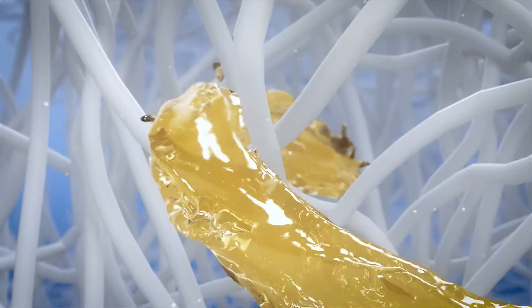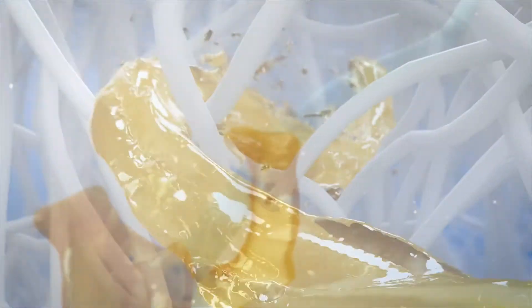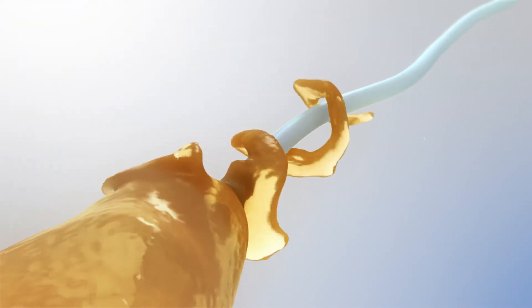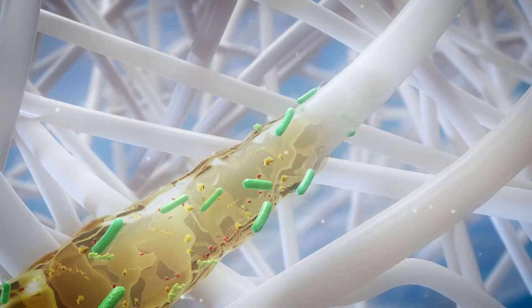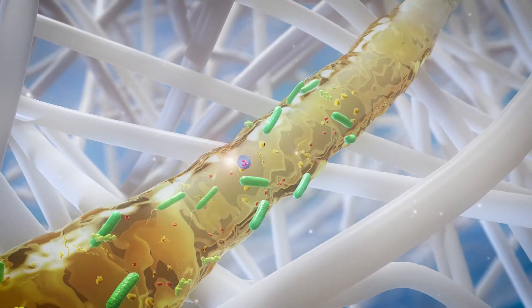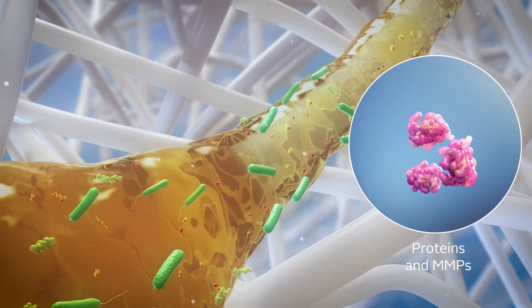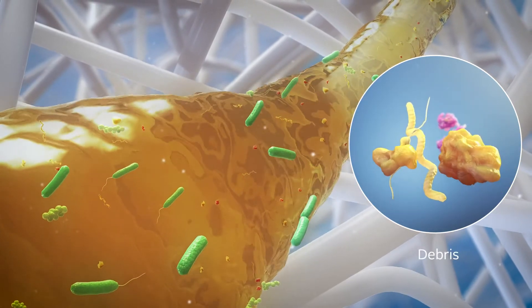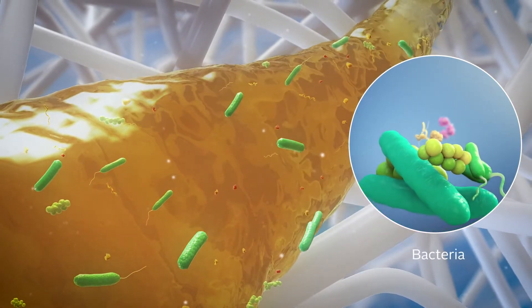A key feature of Hydrofibre technology is how it absorbs wound fluid. The fibres extract exudate and remove and sequester proteins, MMPs, debris and the bacteria it contains.